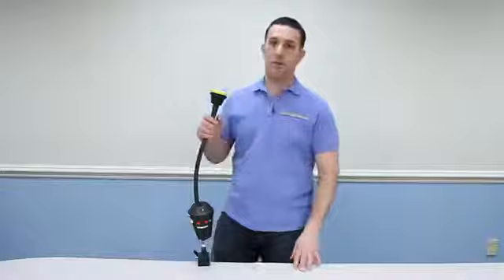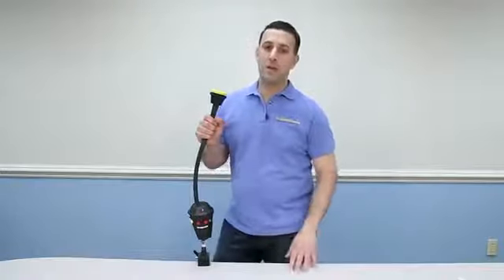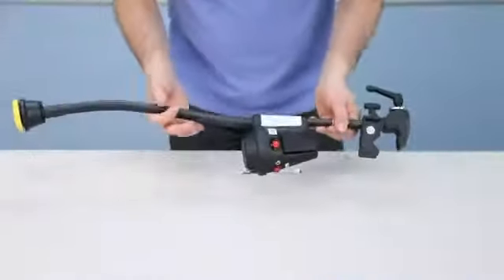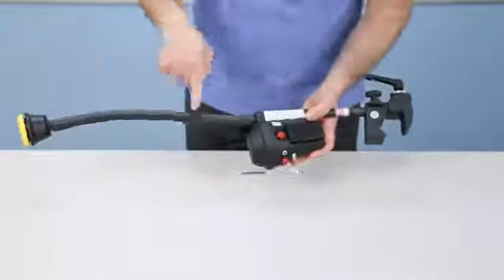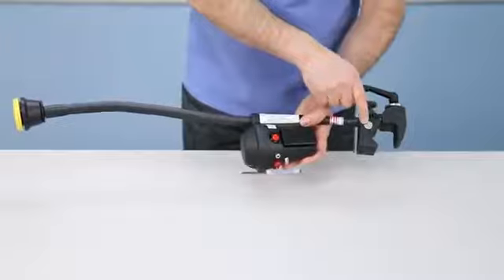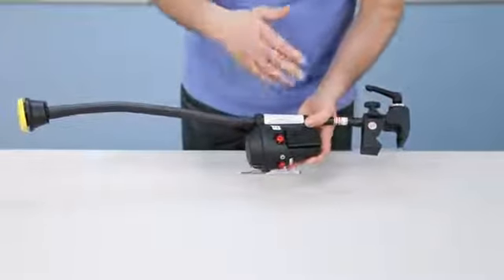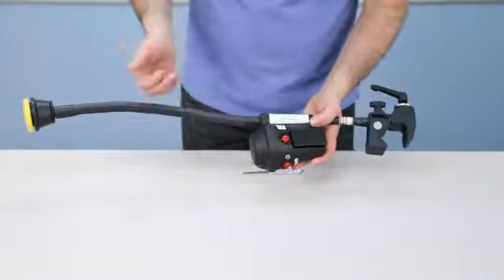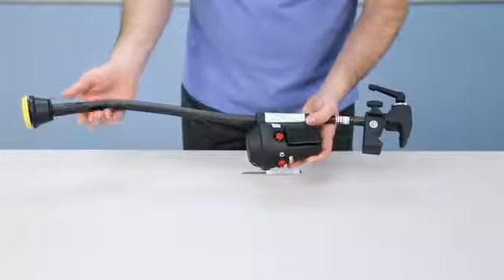Again, with this one switch it allows users to access multiple messages and scan through choices, only using one switch. It's mounted on a 24 inch heavy duty gooseneck. It also utilizes our super clamp. It can be mounted to any table top, wheelchair, bed rail, pretty much any surface.